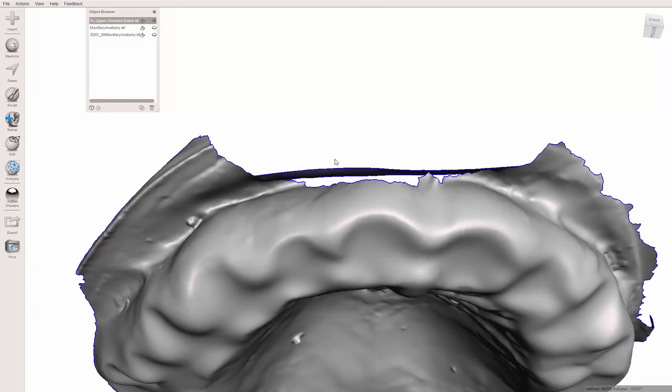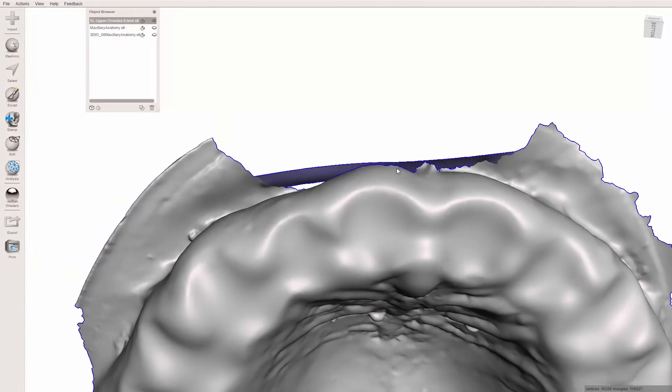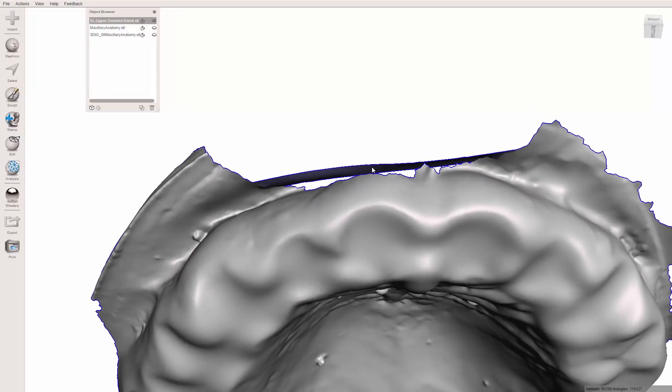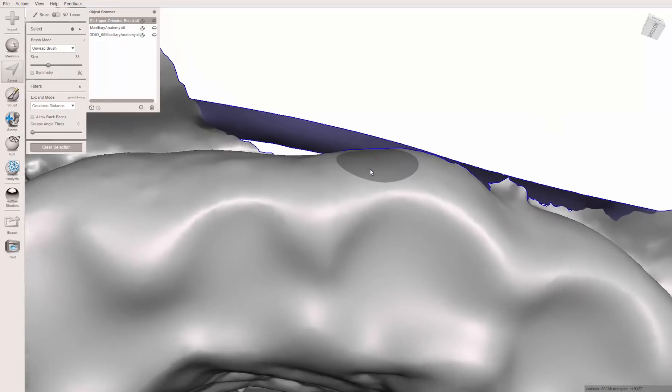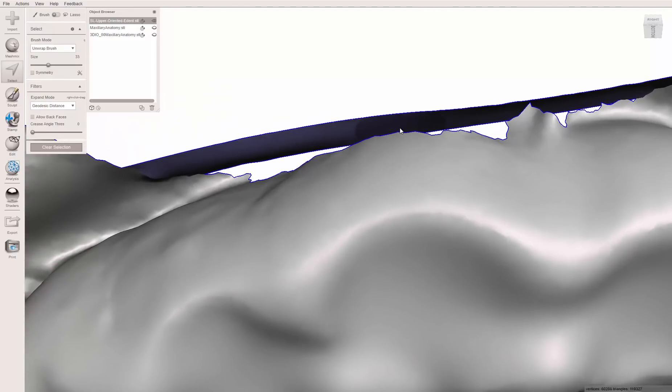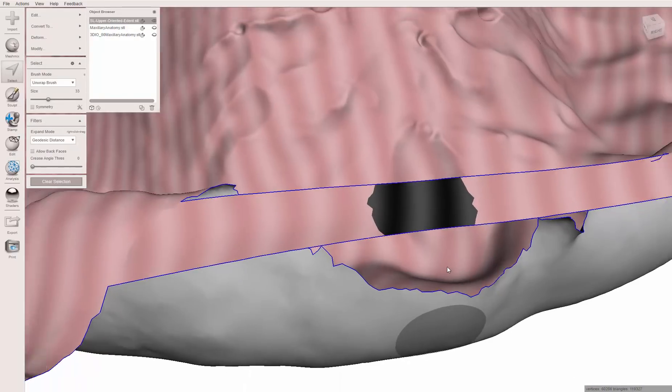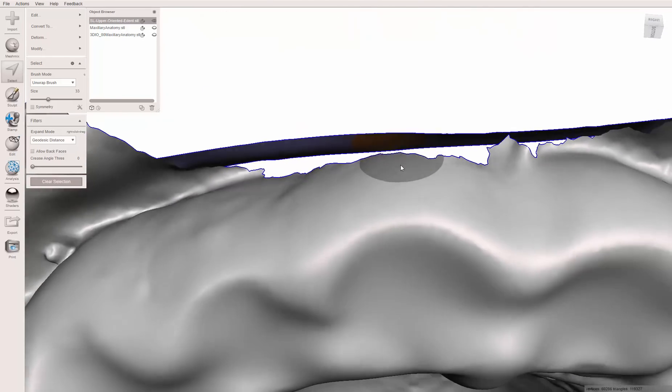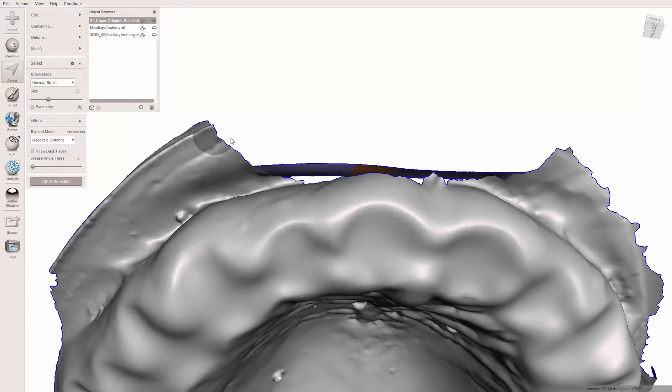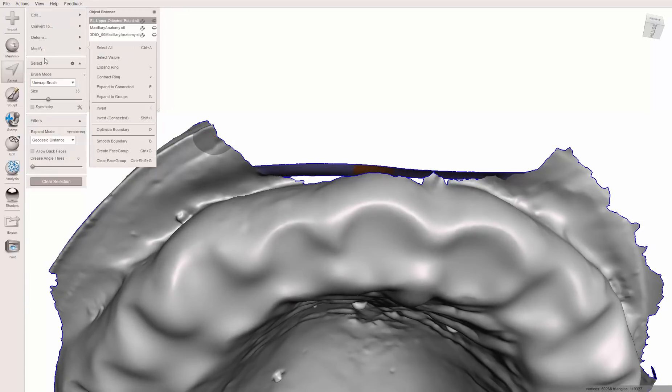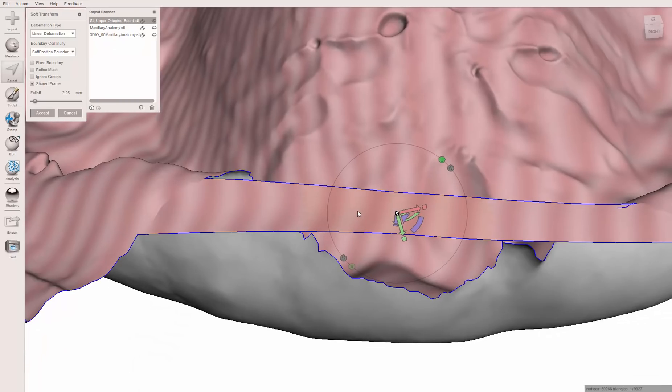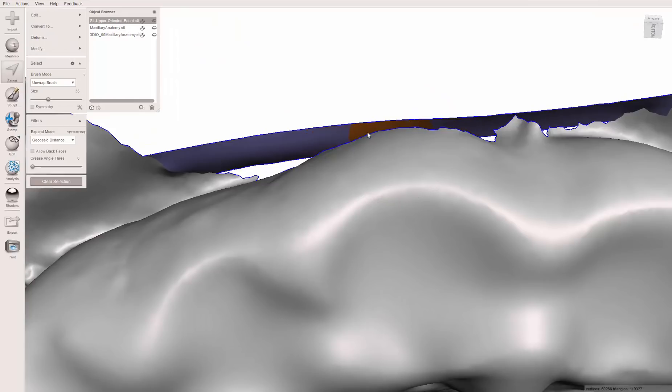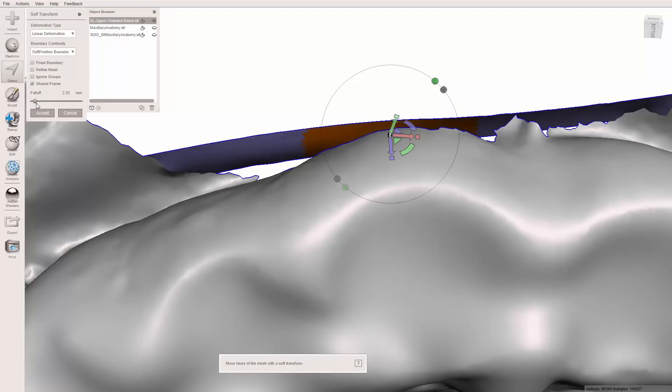Now I'm going to find the middle area and probably the height of contour, which would be this root eminence of number eight, the upper right central incisor. I'm going to hit my select tool. It's kind of hard to see because the purple, you can't really see it well, the selection area. I'm going to select right in the middle here. It doesn't need to be real big and you'll see why in a moment. Now, I'm going to go to deform soft transform. I'm just so used to hitting shift T. Now if you look, the selection area got slightly bigger. That's the falloff.